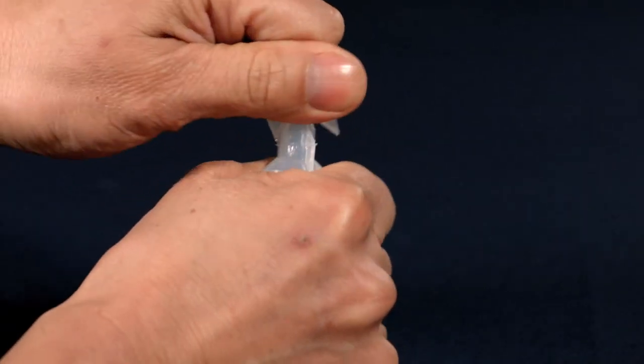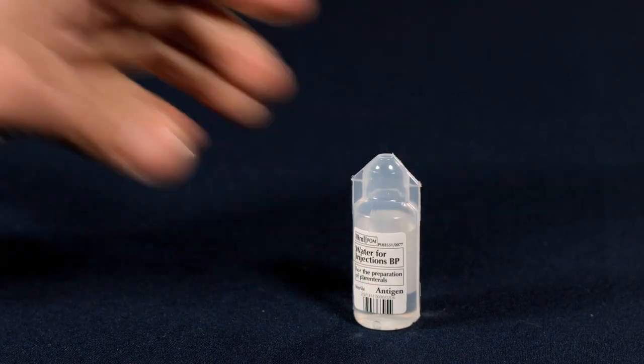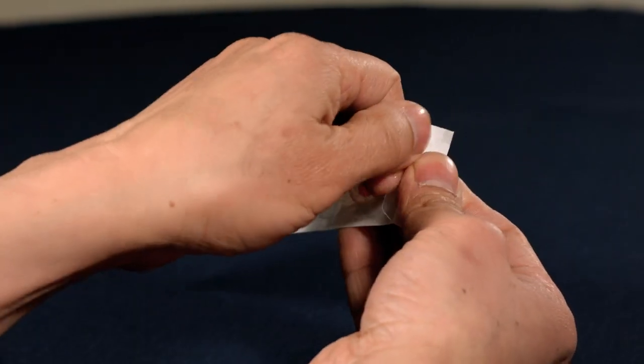Break open the water vial. Peel open the safety syringe.